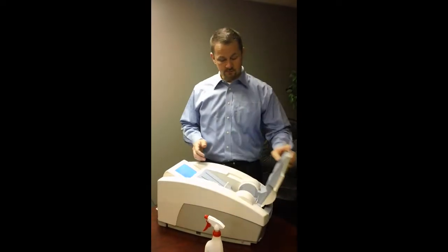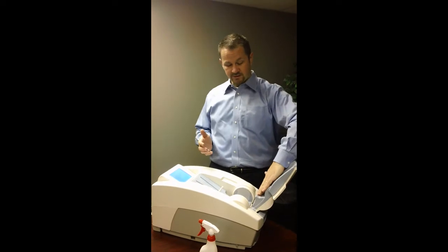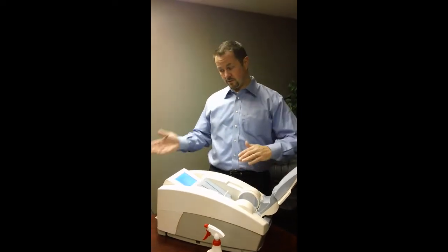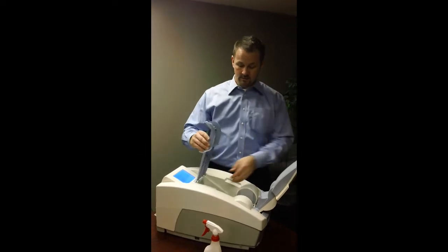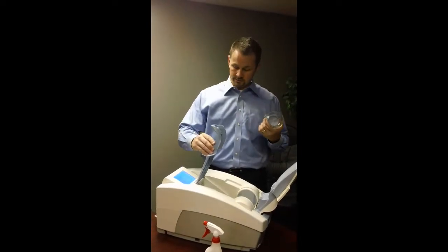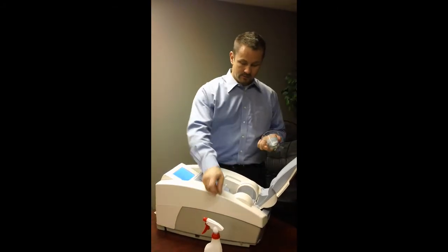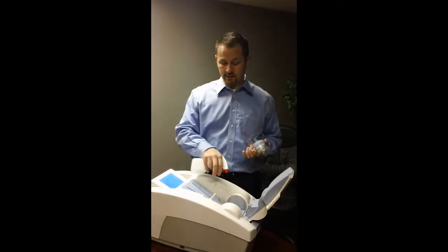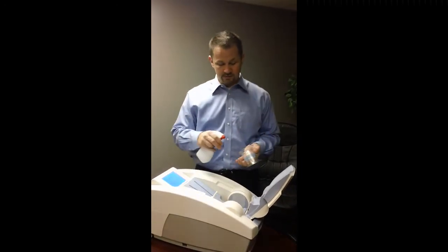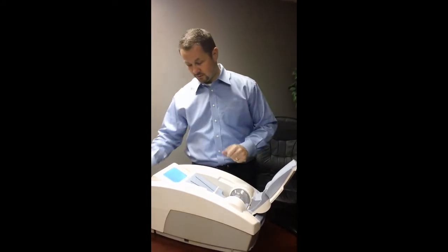This is all you really need to do. This is the platform that the calf would lay on when the unit's on the floor. And then within here you've got the footbed. Underneath here there's a QA cylinder. This QA cylinder is a pretty simple matter — we use alcohol as a contact medium. There's no gel required within the Achilles like other units. You would simply spray the membranes and spray the QA cylinder.